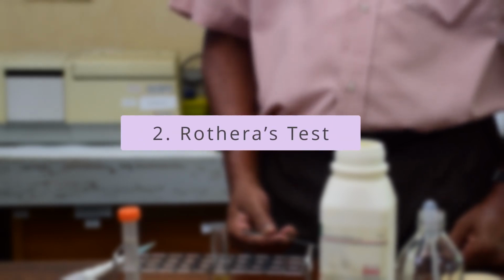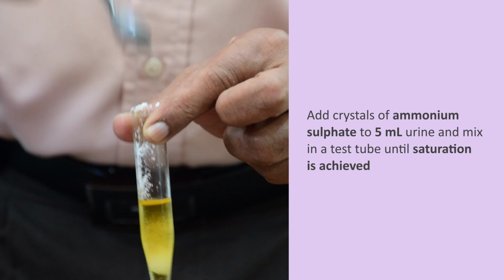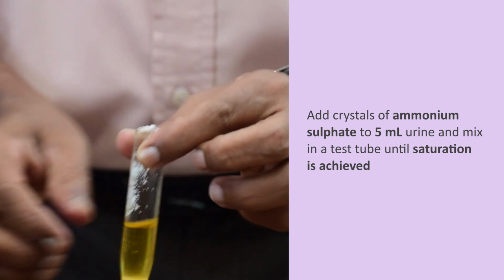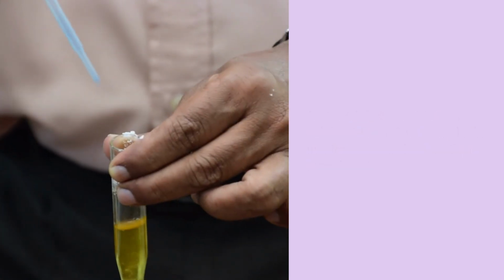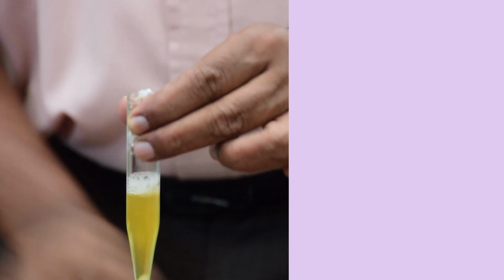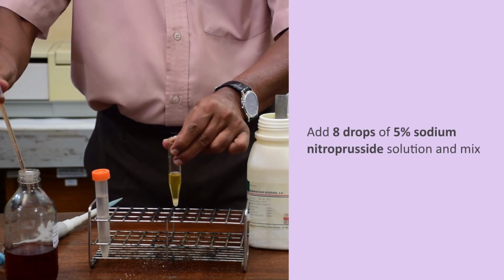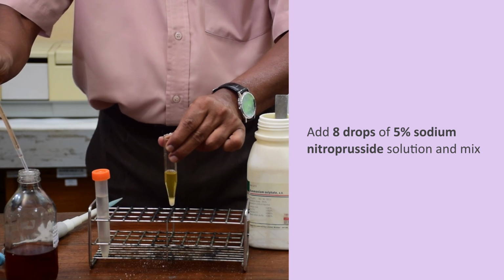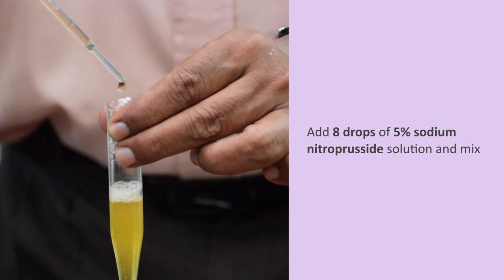Rothera's test is performed to identify ketone bodies in urine. To 5 ml of urine, add crystals of ammonium sulfate and mix until saturation is achieved. Add 8 drops of 5% freshly prepared sodium nitroprusside solution and mix.